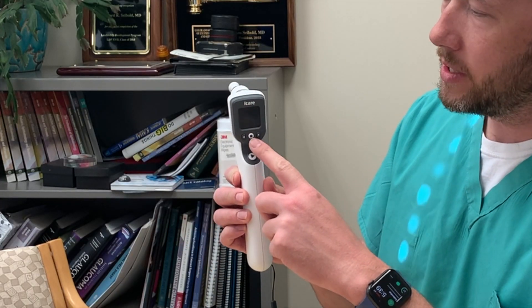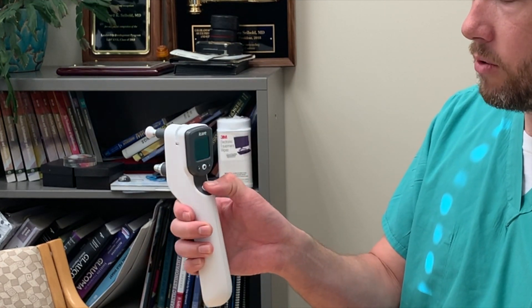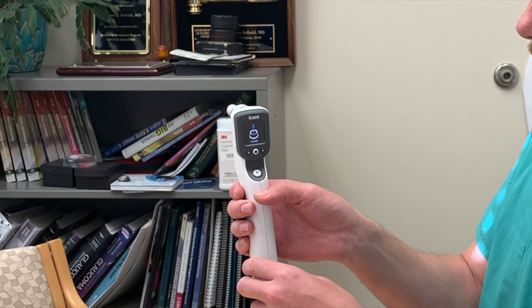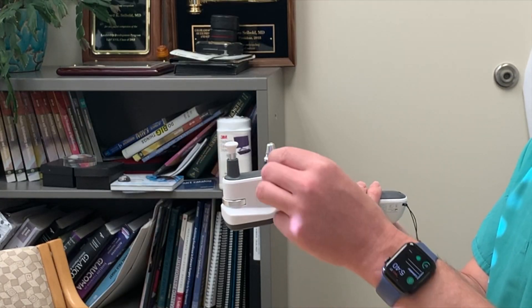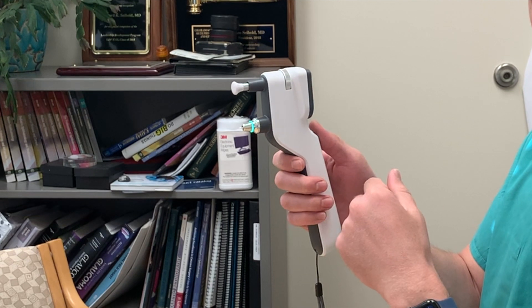Now for the IC200, it has a lot of the same features — the same play button, the same stop button, it's a little smaller, the same probe base and forehead rest. You'll turn it on in the same manner by holding the play button until the screen comes on. It'll give you the date and time and then prompt you to load a probe. Similarly, we'll take a new probe, invert the tonometer, and tip that into the probe base, and then we'll get a green light.